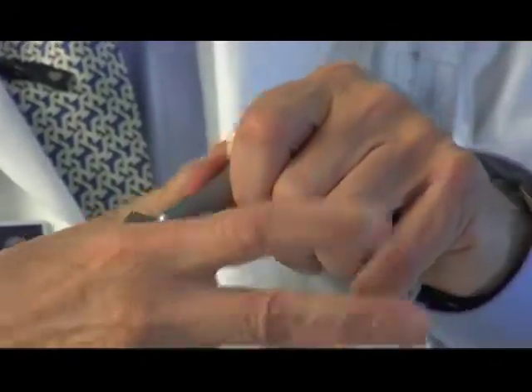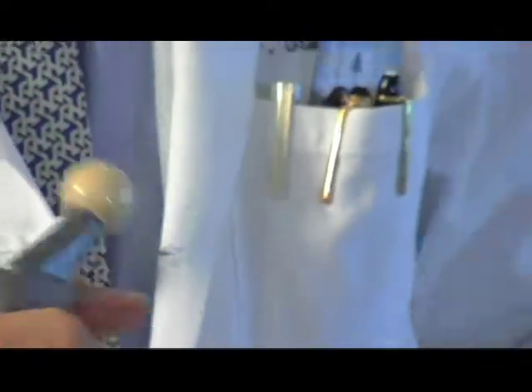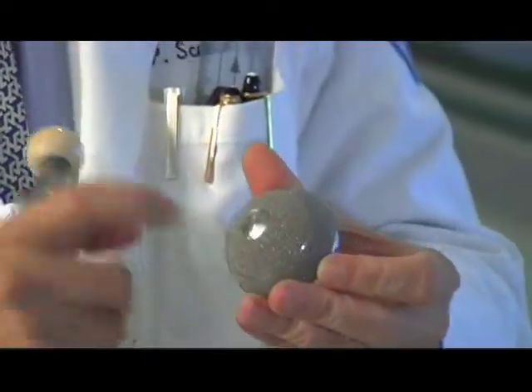And then the bone itself and the surrounding surface of the implant actually grows into these little surfaces. And that's where the actual secondary stability comes from.